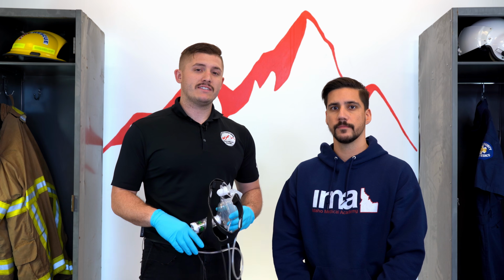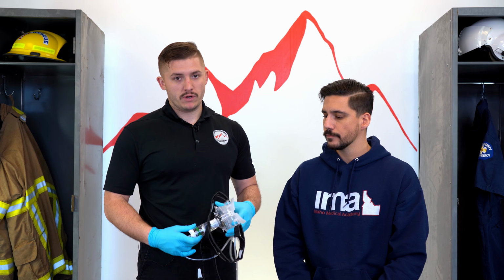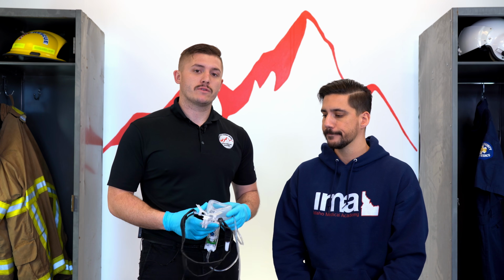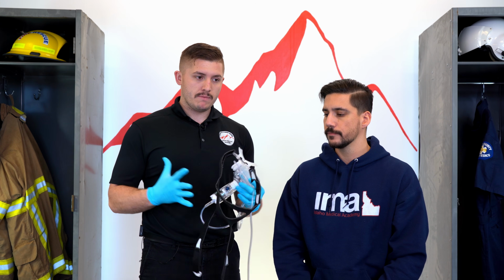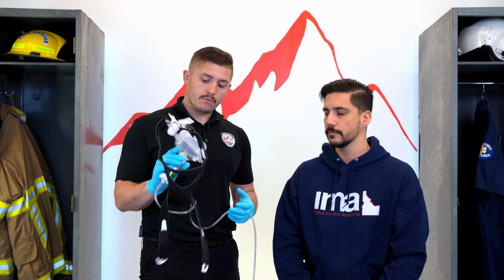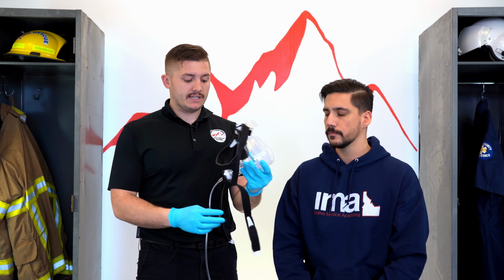Another thing you might see in the field as an emergency responder is something called a CPAP, continuous positive airway pressure. Something we use on patients who are having a lot of difficulty breathing. These patients also might be suffering from something called CHF. Typically, CPAPs come in a big machine. Depends on what your agency is carrying. Here where we're at, we carry something like this where we can actually just hook up to an oxygen tube. This is called a BLS CPAP.